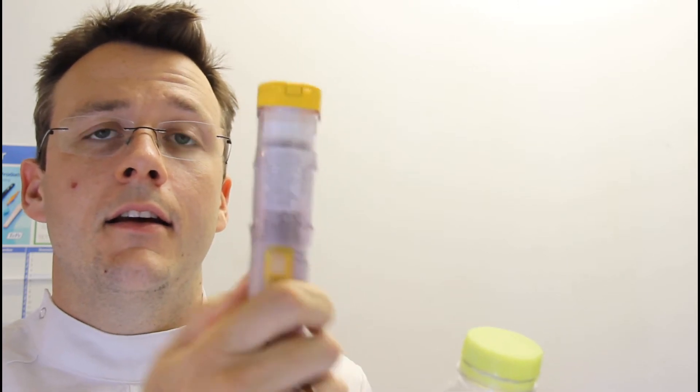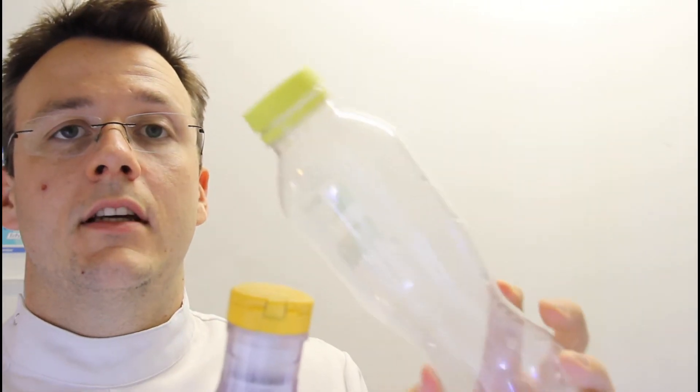So we've all been taught how to counsel the use of an EpiPen, but no one's probably actually seen it in action. So I thought I'd get a discarded expired EpiPen, fire it into this bottle, and you'll see just how deep it goes, and just how much comes out.